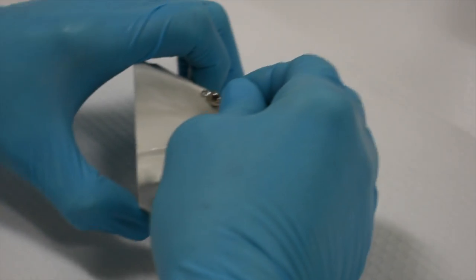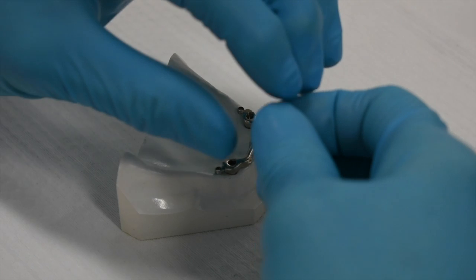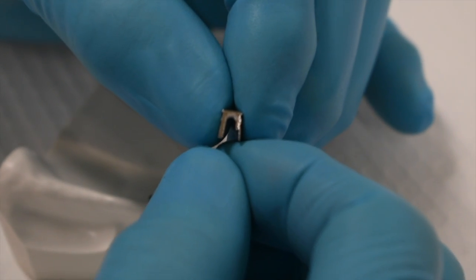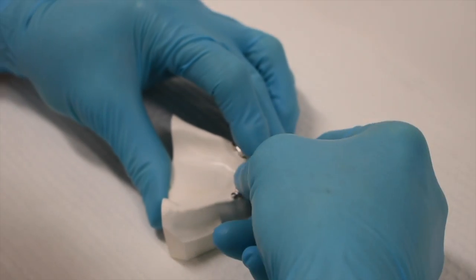First, we snap the gray plastic processing rider onto the bar. Now, the metal housing, as I said just a little while ago, has an open end, as you see here, and then the other end has just a bit of a lip that covers it. So the clip will only slide on from the open end. The first time I did this, I didn't do it well, and I had all sorts of trouble. We're sliding it on from the side, so I position it.